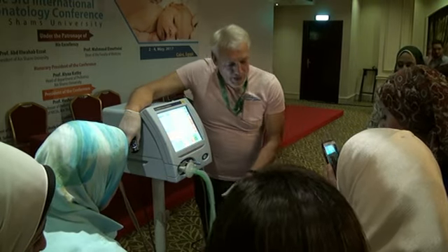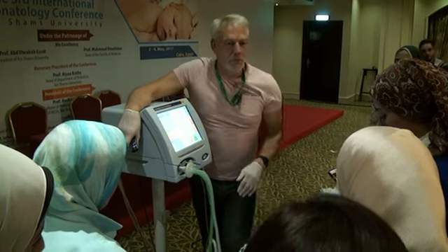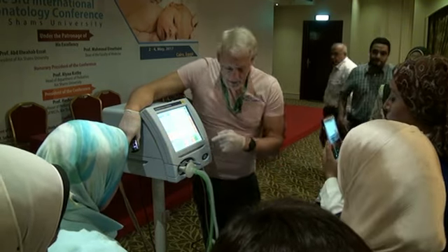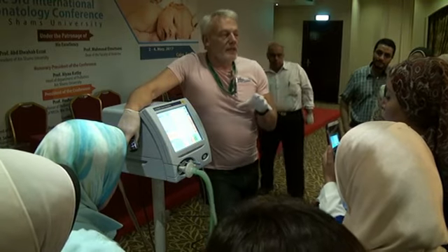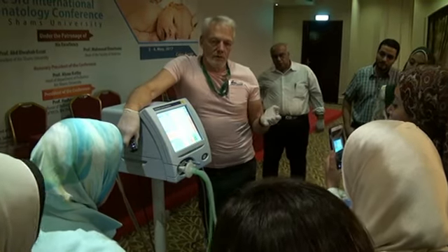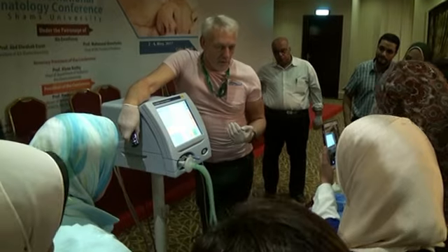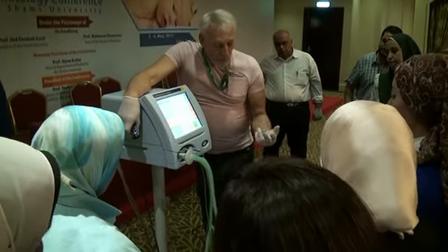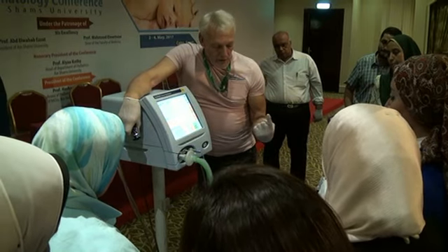I'm getting a bit of a wobble now. Now we can see, for those who like wobbles, this is a wobbler. And then I can go up on my mean airway pressure. And this is probably easier than conventional ventilation because you just have to change your mean airway pressure. So one button, two at a time.